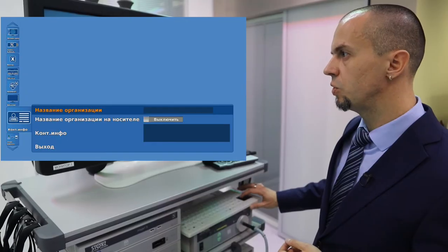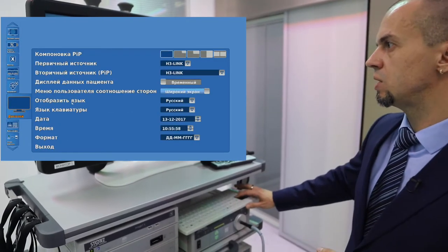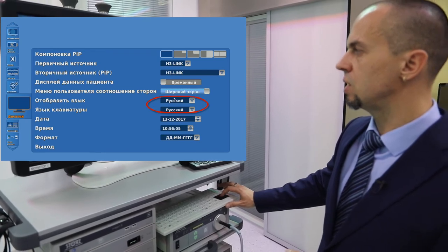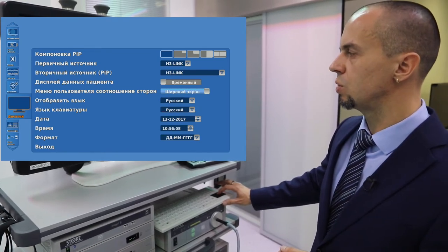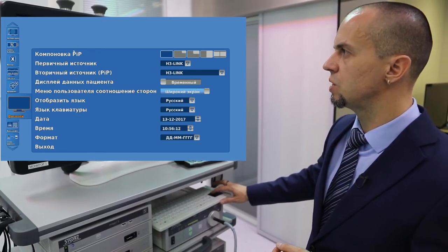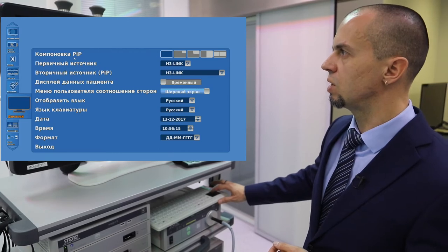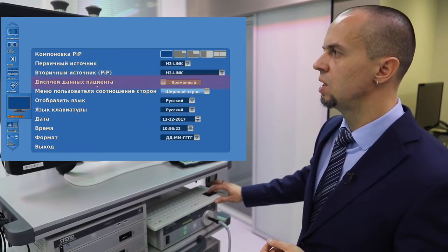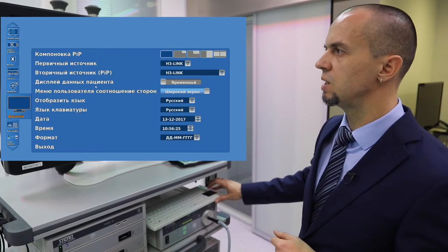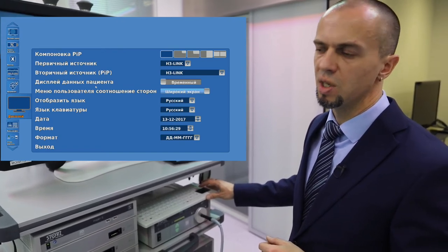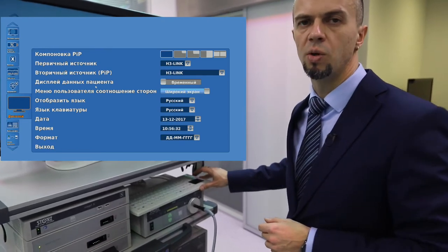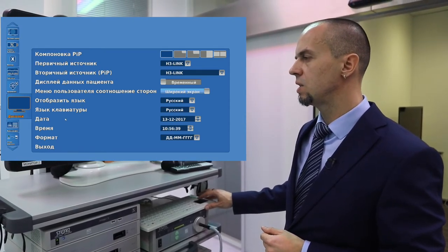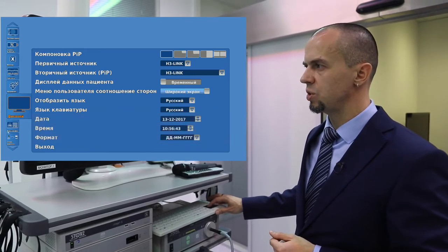«Общее» — «Дисплей». Именно здесь мы выбираем русский язык: как отображение на дисплее, так и меню «Клавиатура», то есть что у нас клавиатура подключена на русском языке. Также здесь можно сделать первичные настройки: конфигурацию экрана, выбор первичного и вторичного источника, дисплей данных пациента. Вводите ли вы данные пациента перед началом процедуры — это нужно, чтобы создавалась папка с фамилией и именем пациента. Дата, время, формат даты настраиваются здесь же.